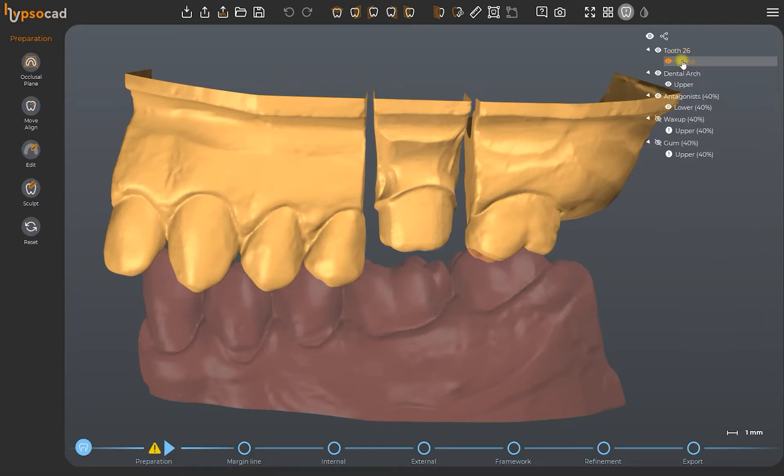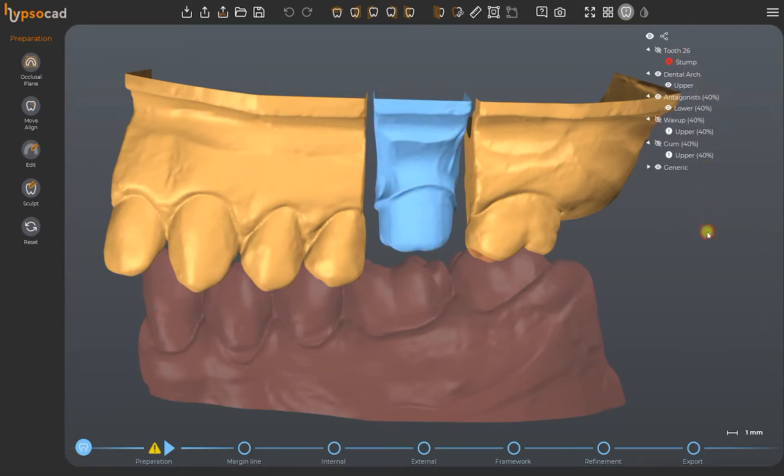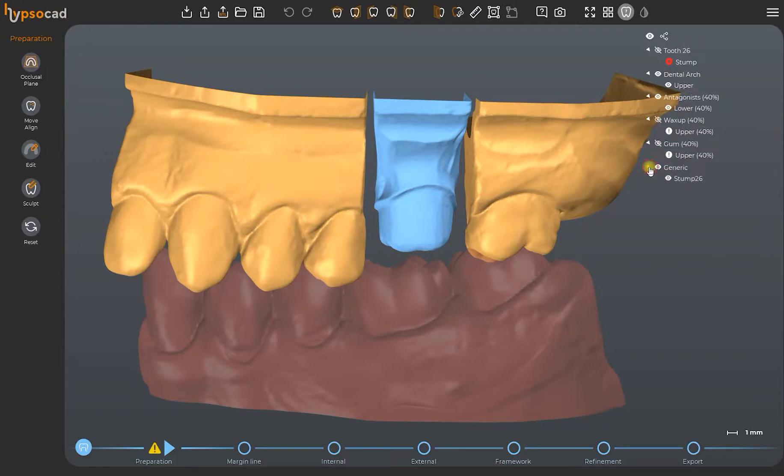All the mandatory meshes, that is, all the required meshes in order to complete the construction process. If missing, will be seen holding red. The software won't allow you to proceed until you upload and provide them.